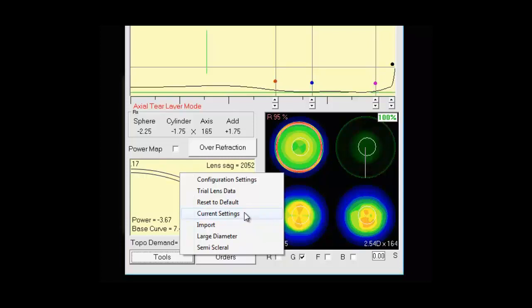The software will align the contact lens to the cornea as best it can based upon those settings you put. For example, if you set the optic zone intermediate curve and diameter at certain areas. Run current settings. It will align the lens based upon those settings.